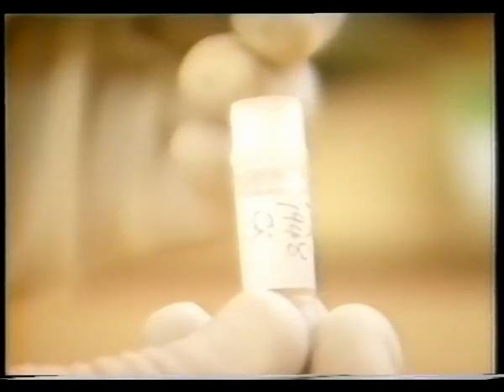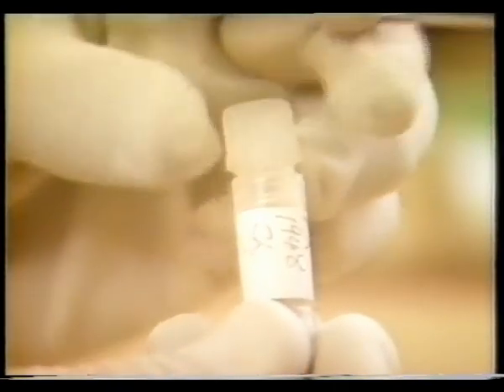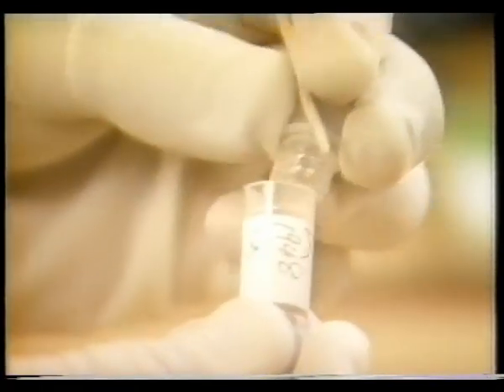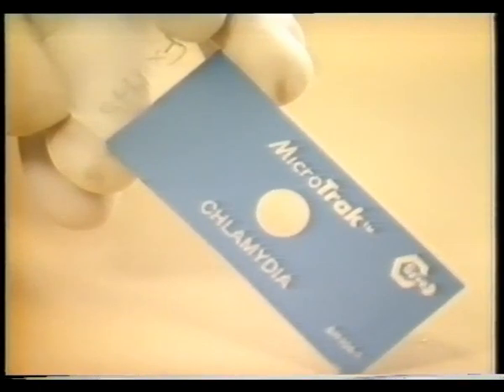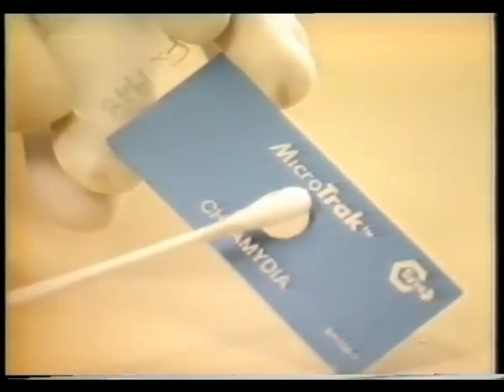Specimens for chlamydia collection are even more difficult and must be collected as soon as possible after the onset of infection, and transported in a medium formulated to maintain chlamydia effectively. Swabs are placed in chlamydia transport medium, and if a delay is expected, they must be stored at minus 70 degrees centigrade. Newer fluorescence-labelled monoclonal antibody techniques to identify chlamydia elementary bodies are now available, but still require very careful collection of specimens.